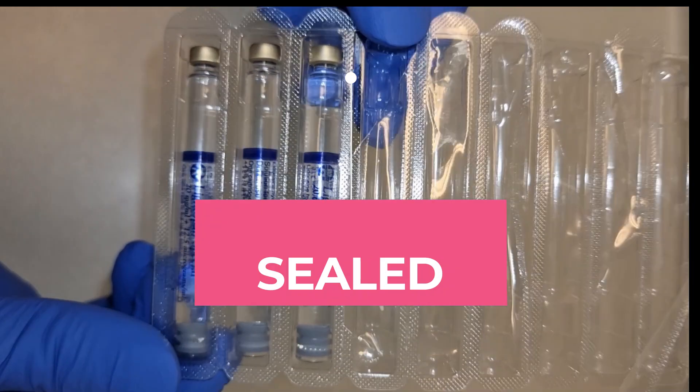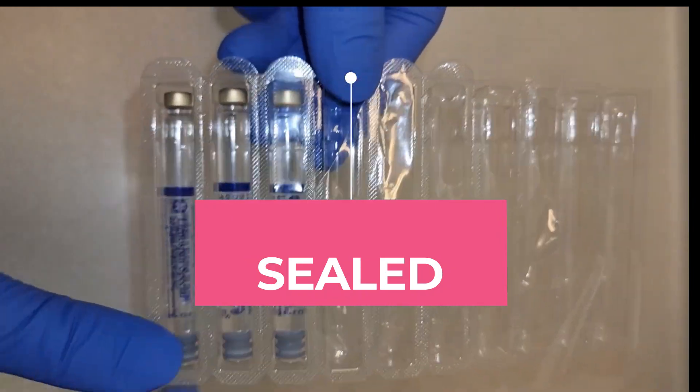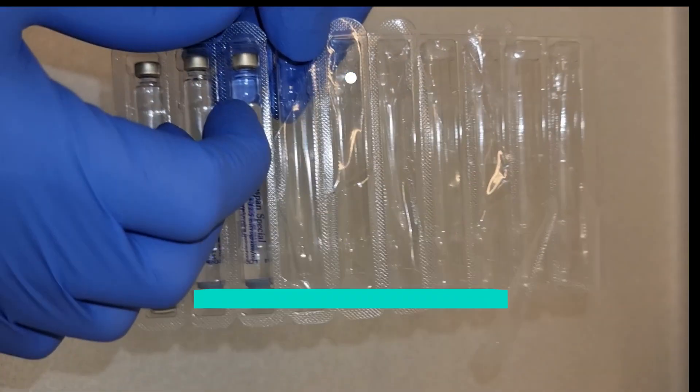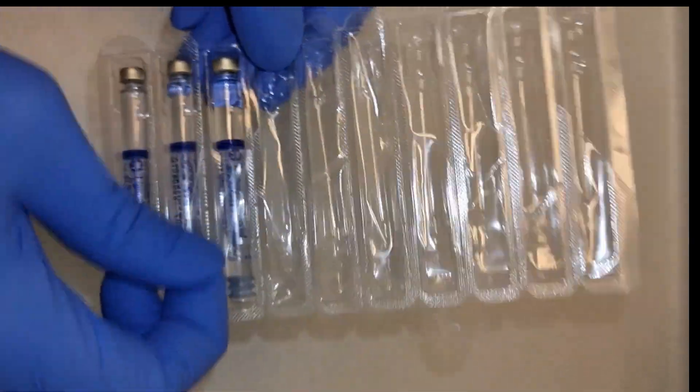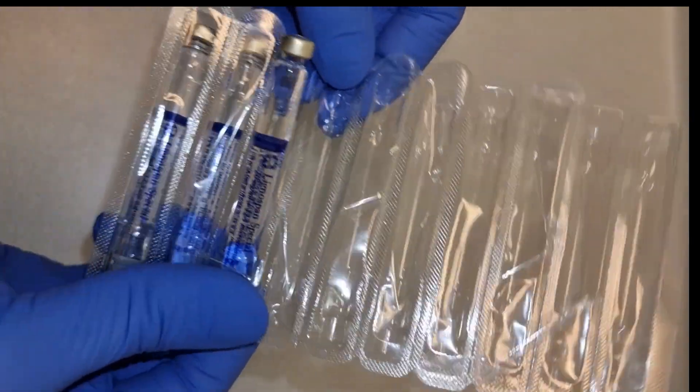It's not good practice to take them out and put them in your drawer, so make sure it's sealed before you take it out. Once you've removed it from the packet, these are the following checks you need to make.